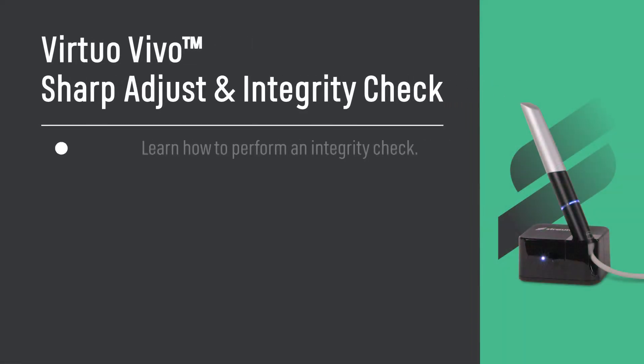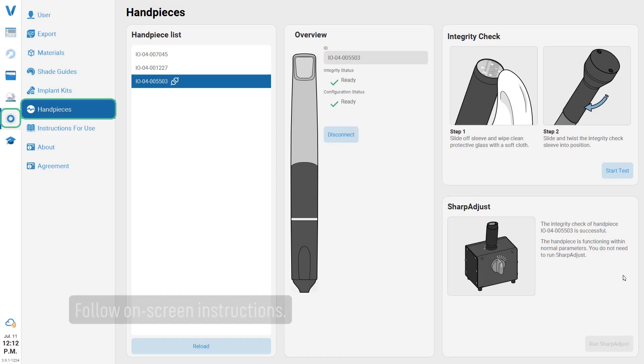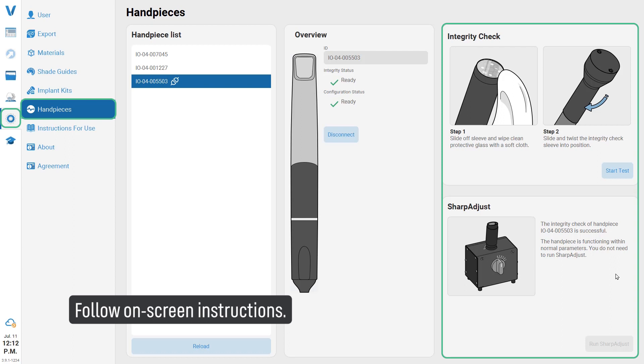Sharp Adjust and Integrity Check. Learn how to perform an integrity check, understand how to recalibrate your handpiece with the Sharp Adjust tool. Follow on-screen instructions.